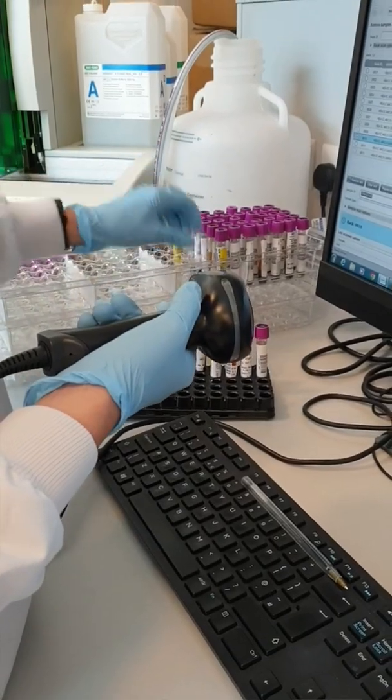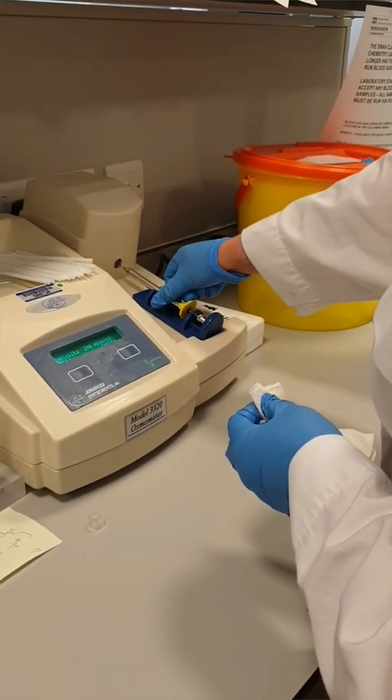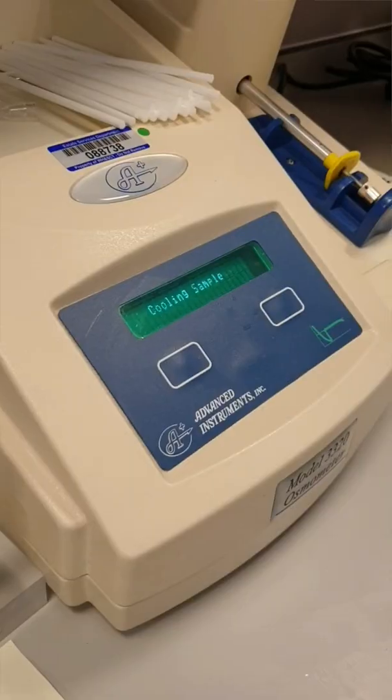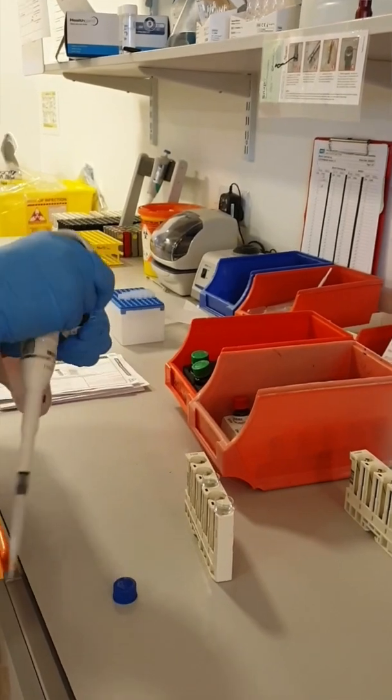The laboratory is open 24 hours a day, seven days a week all year. The team has pulled together during the COVID pandemic and we've all worked extremely well providing the high quality service that we do throughout the year.